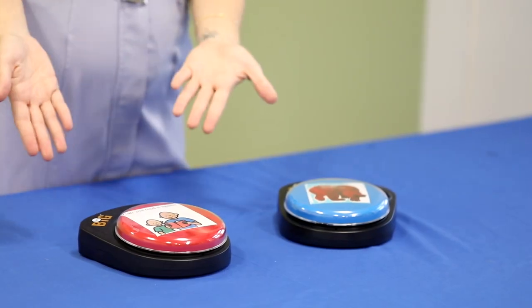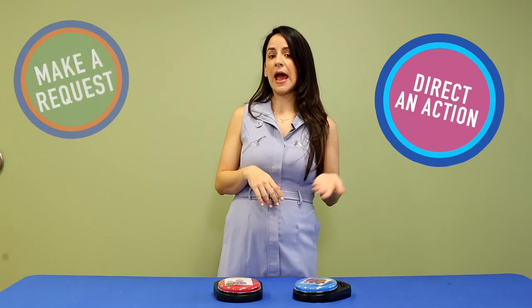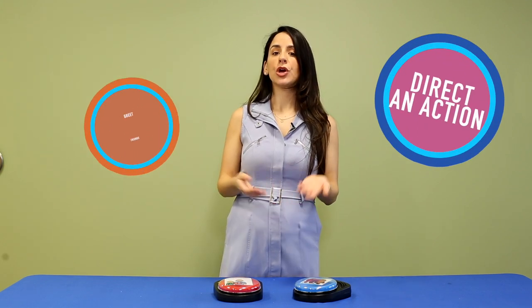When using a communication device, we also want to consider the communication function. Are we going to have the child make a request, direct an action, or greet their friends in the morning?